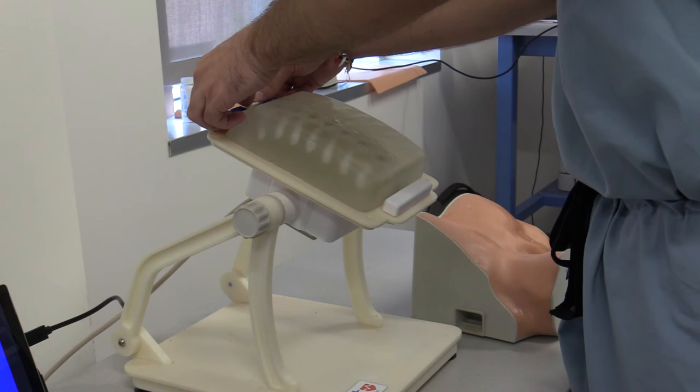Each anatomical block is made to mate with the SMARTS platform. The simulation shares the same components with our other SMARTS-compliant, modular, mixed reality simulators.